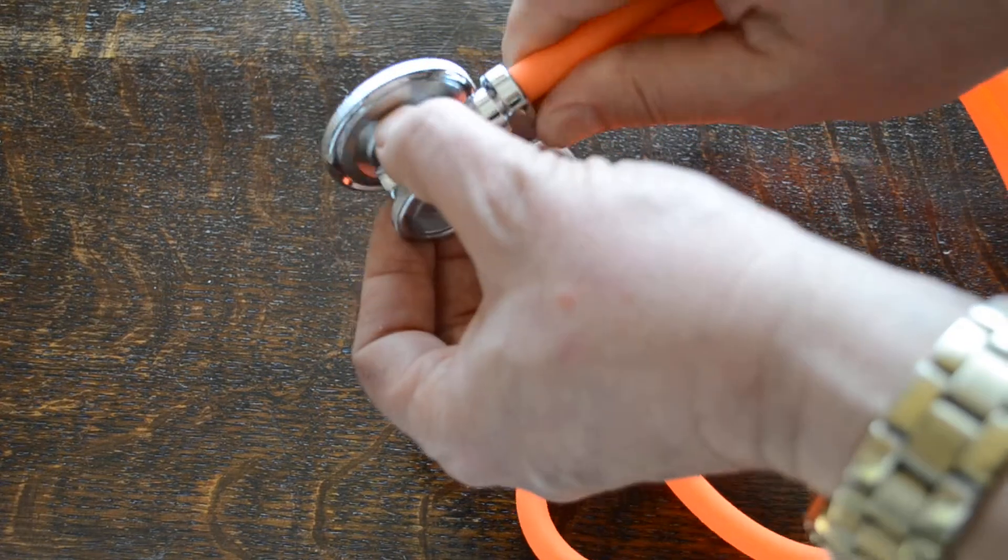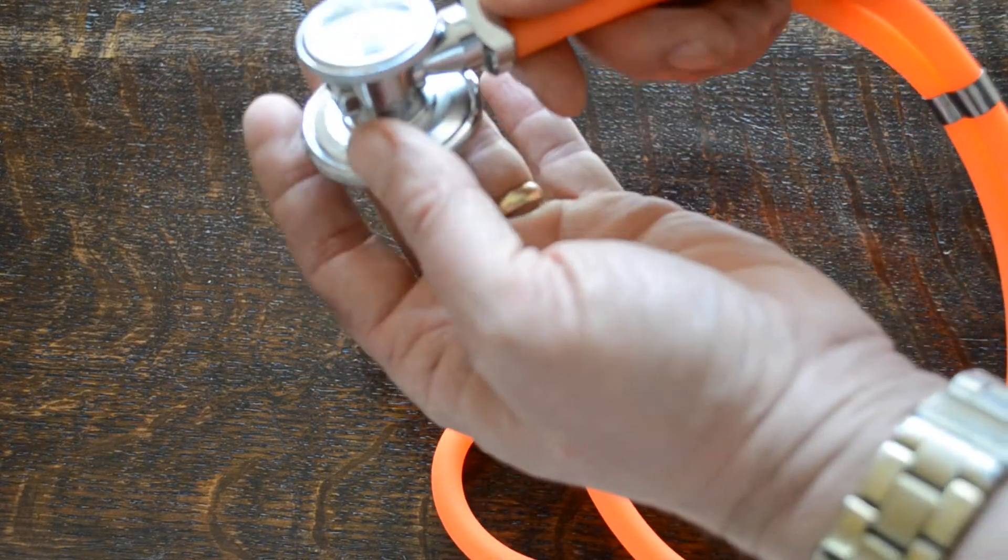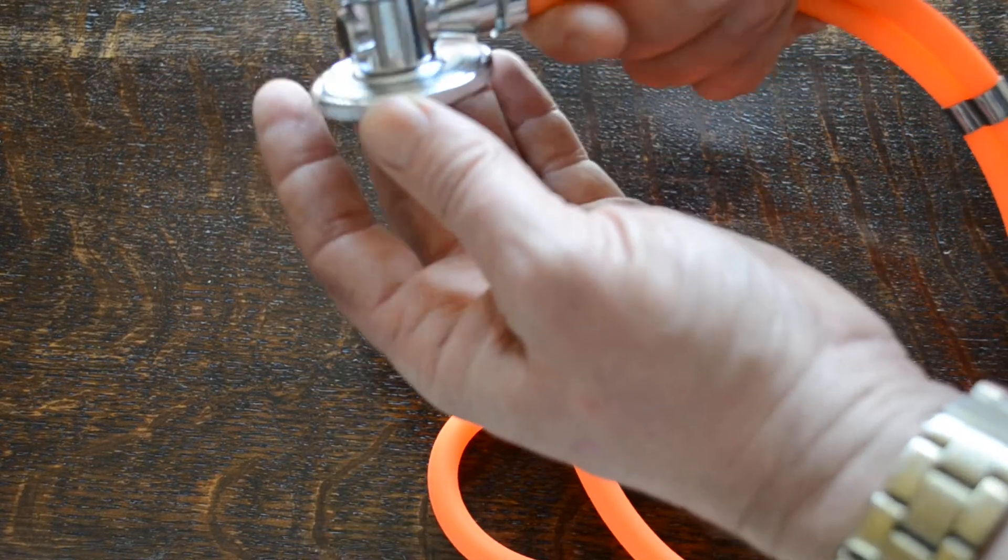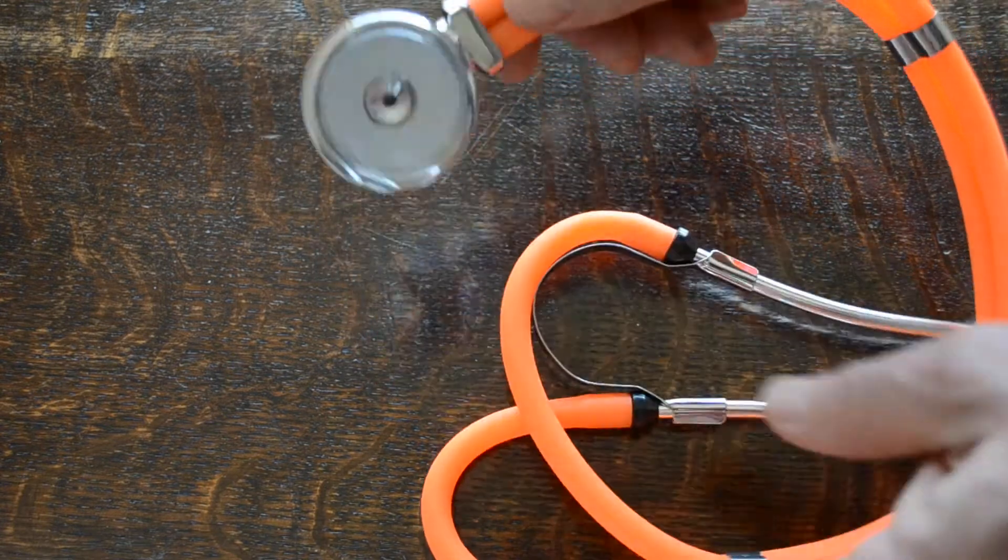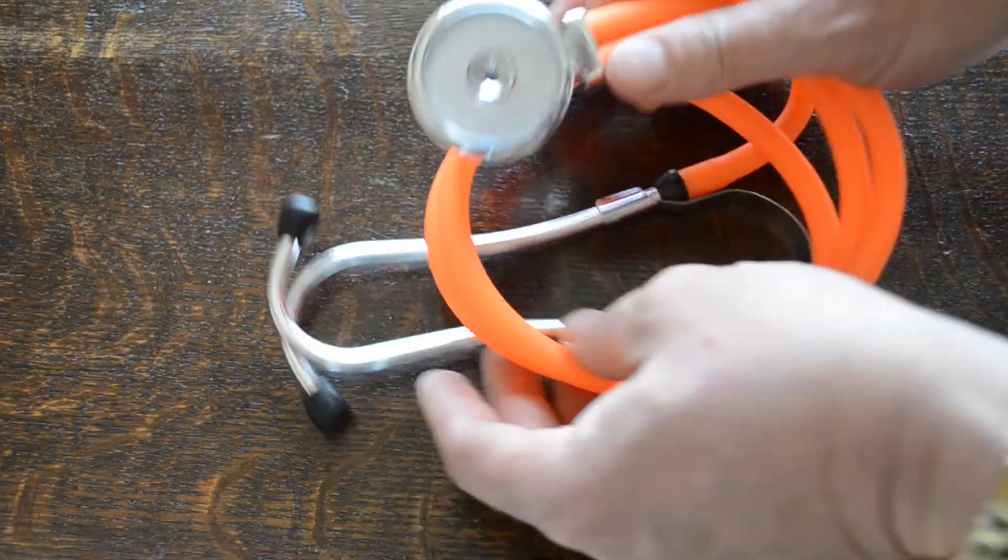The rotation on this is very nicely manufactured. Clunks into place. There's no giving that at all. Once it's locked in, it's really nicely selected. So that's the stethoscope.